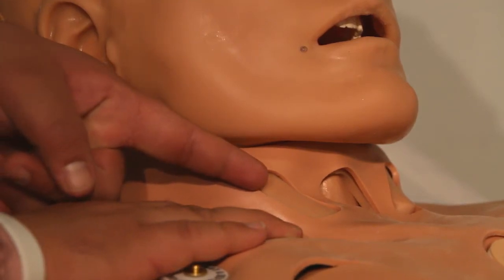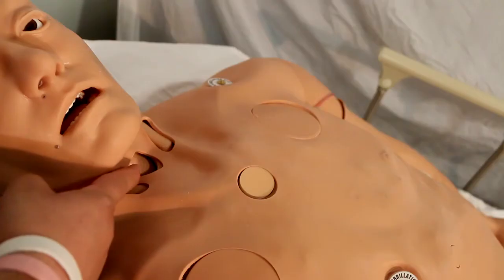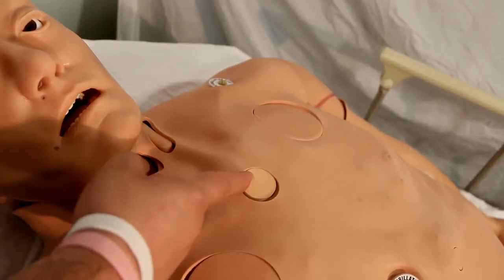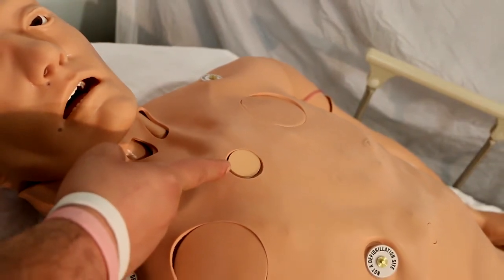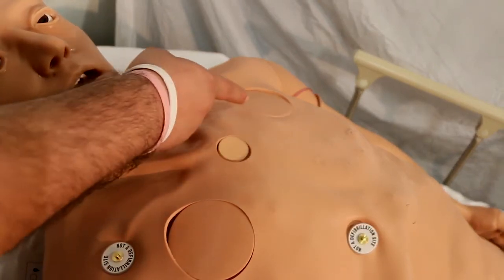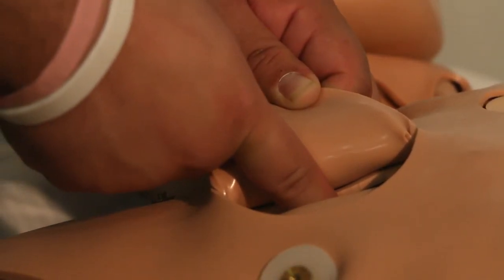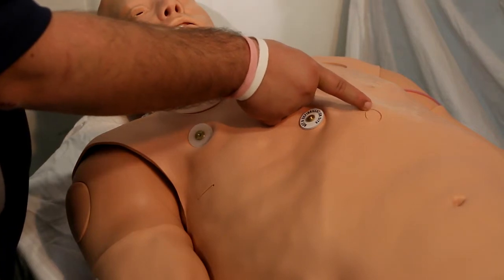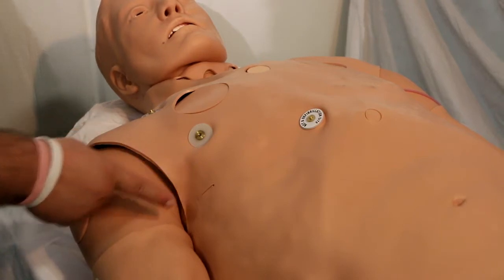Carotid pulses, IV access, and needle cricothyroidotomy. On the chest: sternum, FAST IO access, and bilateral chest decompression sites, pericardiocentesis sites with fluids.